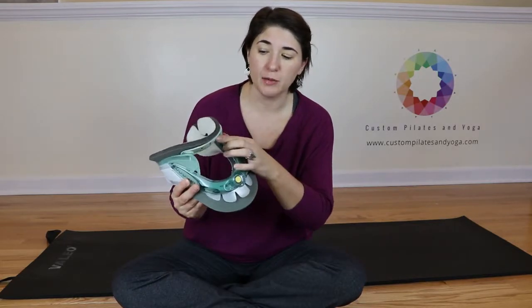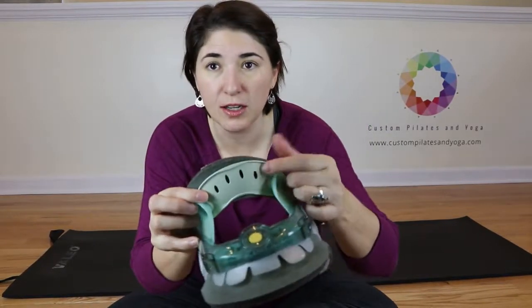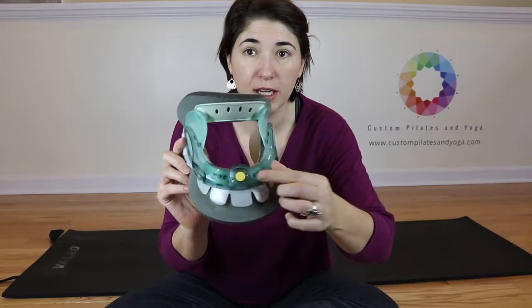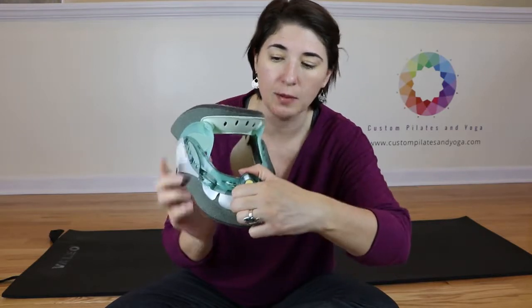However, the up and down position of your chin is controlled by this little lighter green piece of plastic here. And that is controlled by the knob. Right here, that little circle with the yellow dot is your adjustment knob.